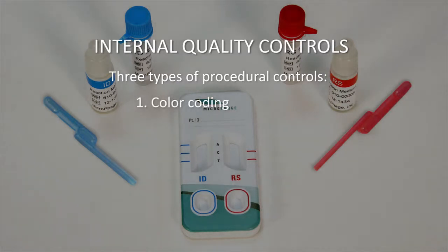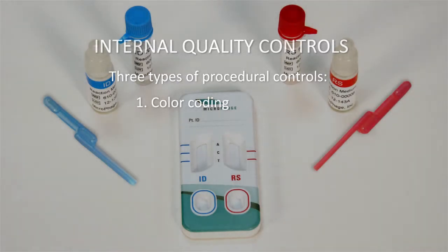Color coding. KeyPath test components are color-coded to provide easy identification when mixing reagents and while dispensing the incubated reaction tube mixtures into the sample wells on the detector.